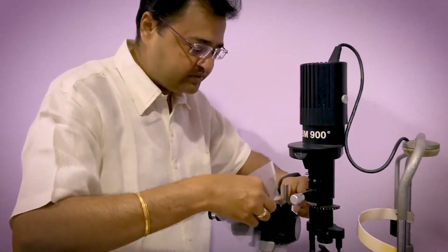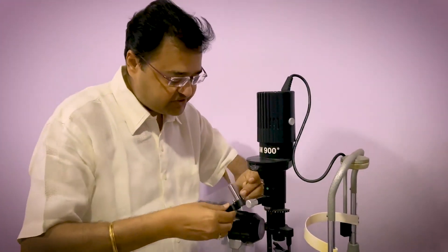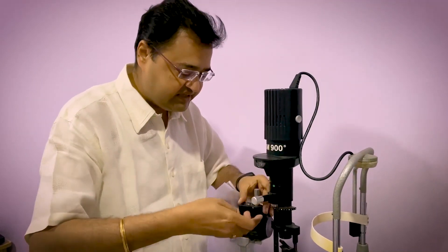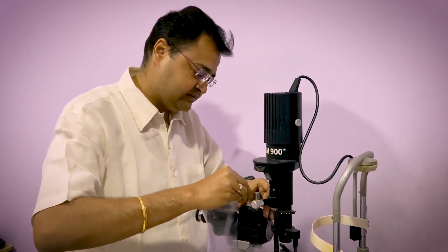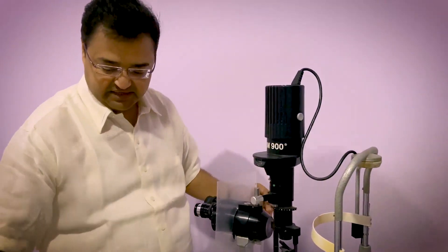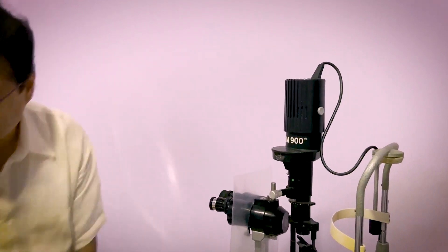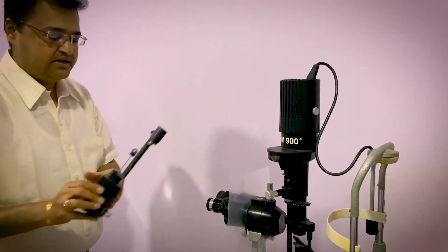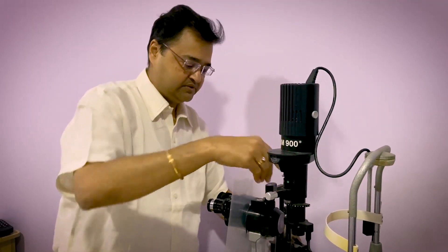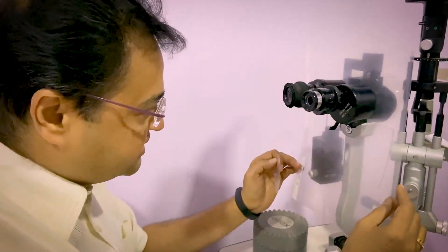So now the spring which was taken out. This part is placed first. The spring is put inside. And then this screw is tightened. So now it is tightened. Now the applanation tonometer is taken back. This put where it was before. Now we have mounted the shield. But you can see there is a gap over here.